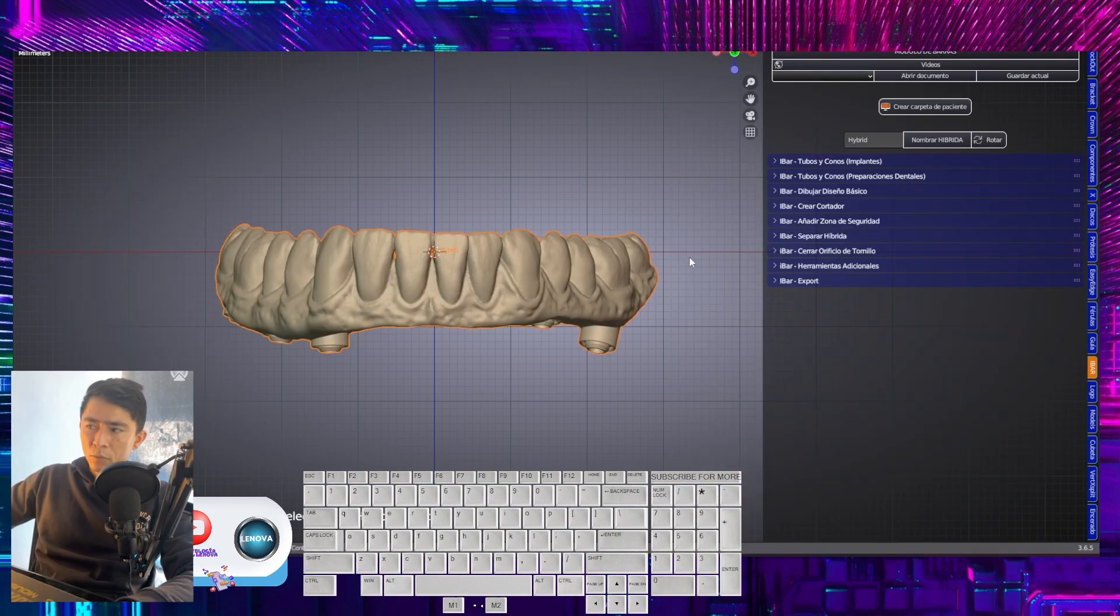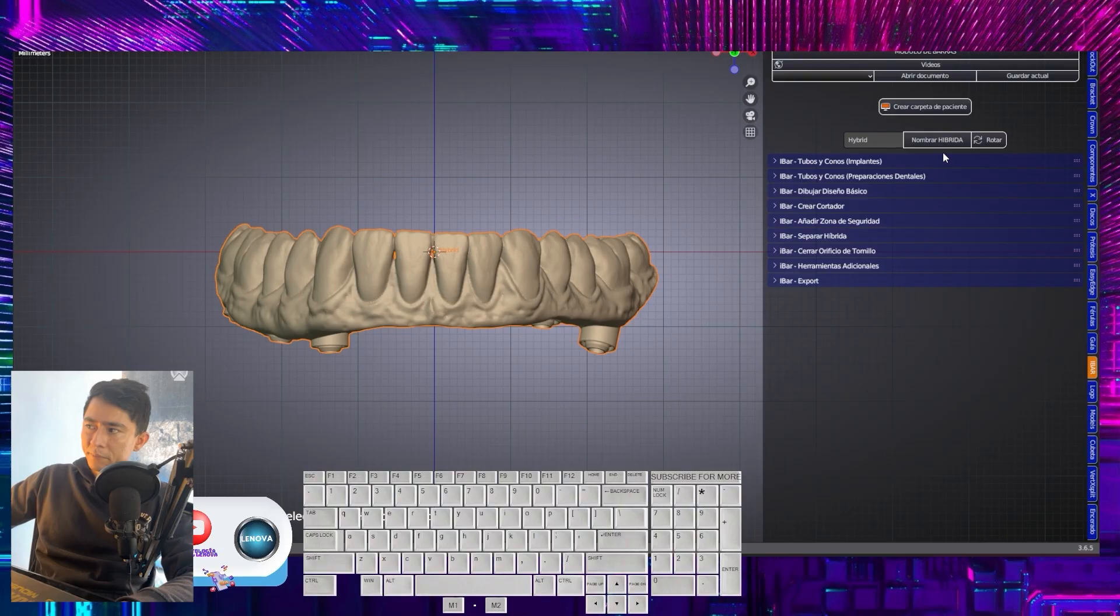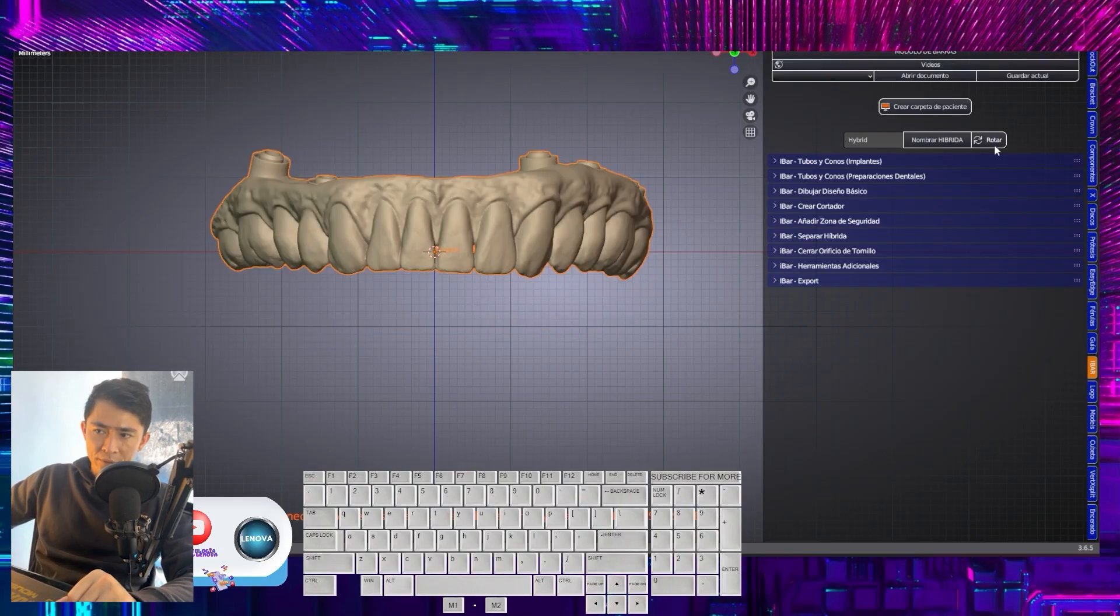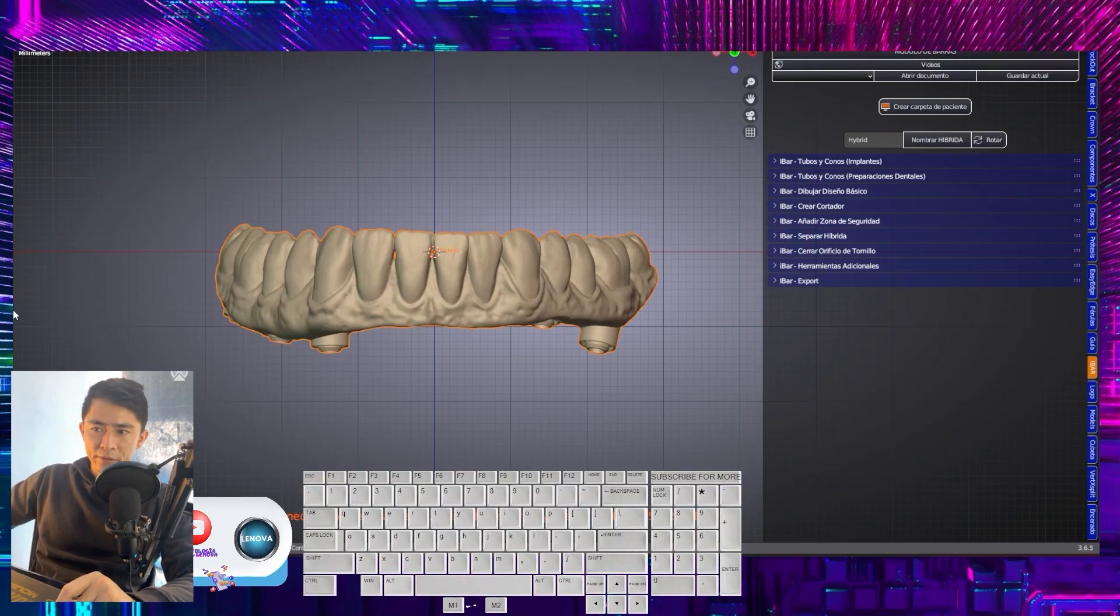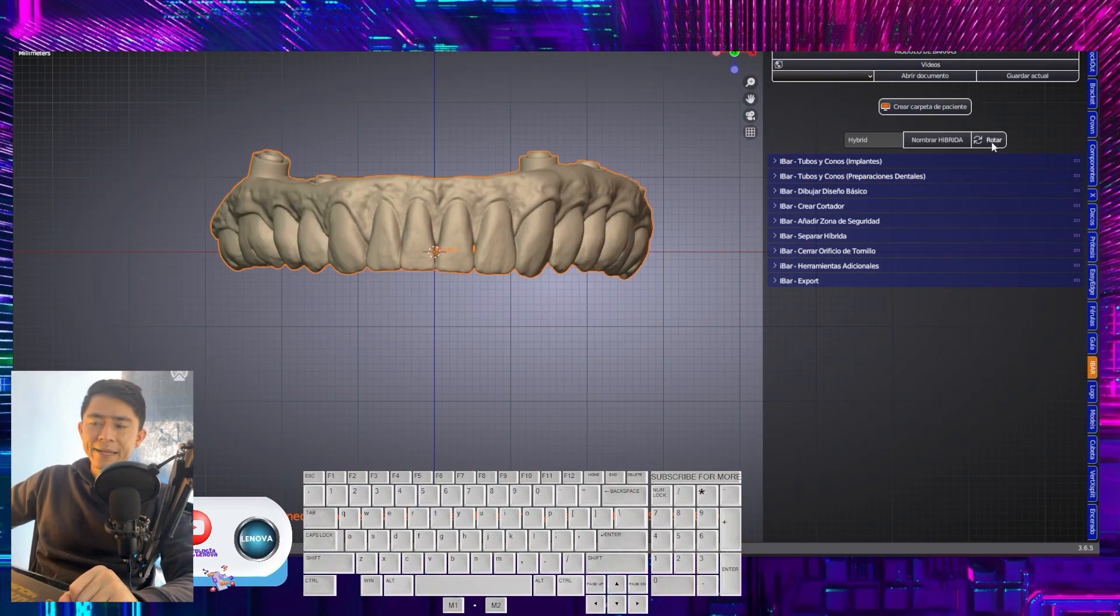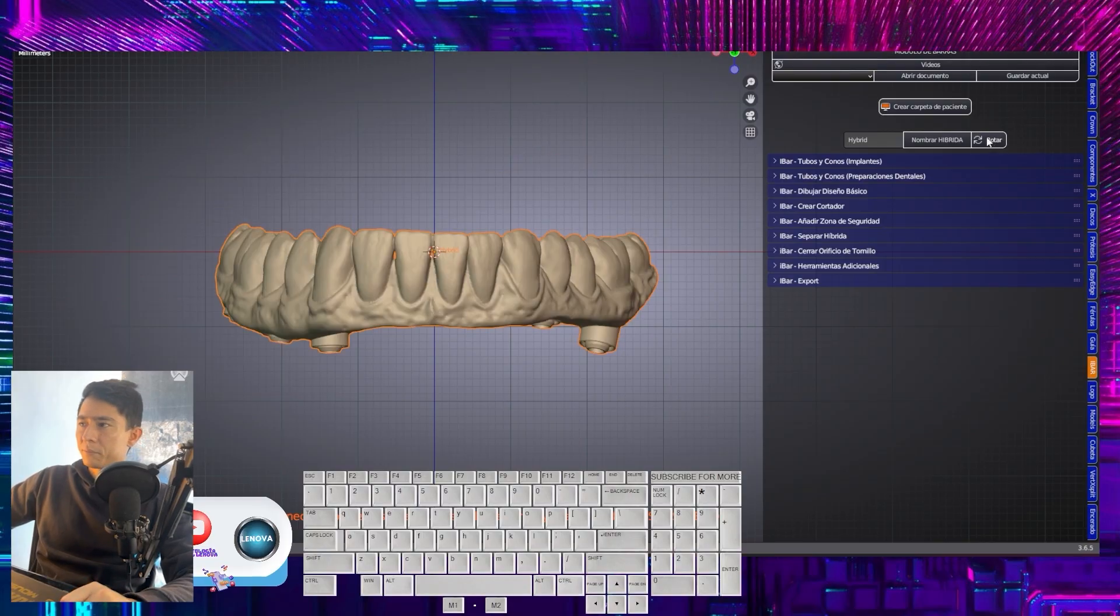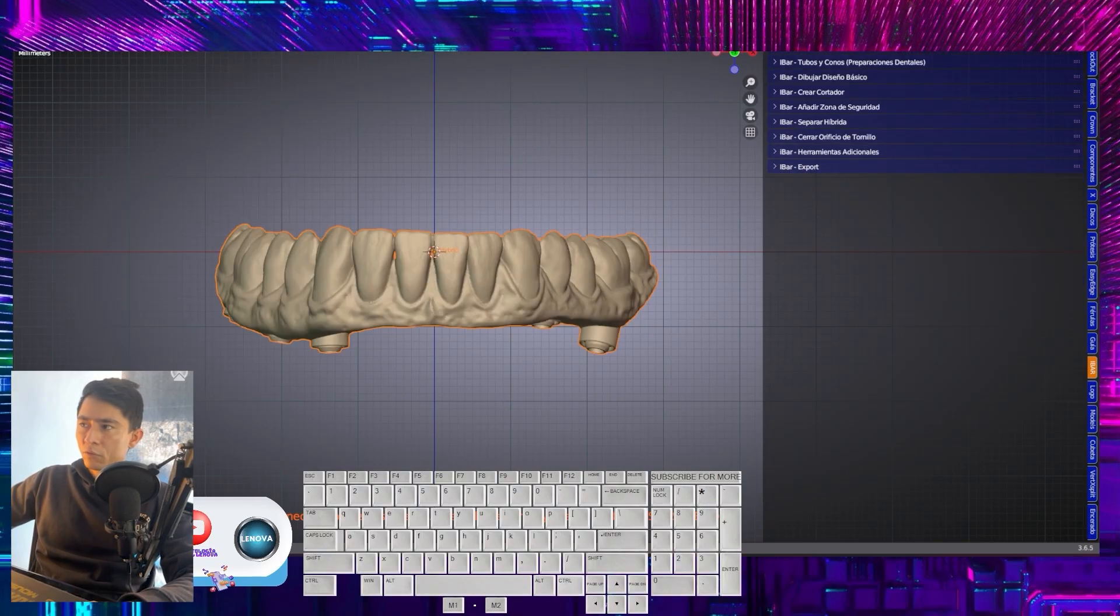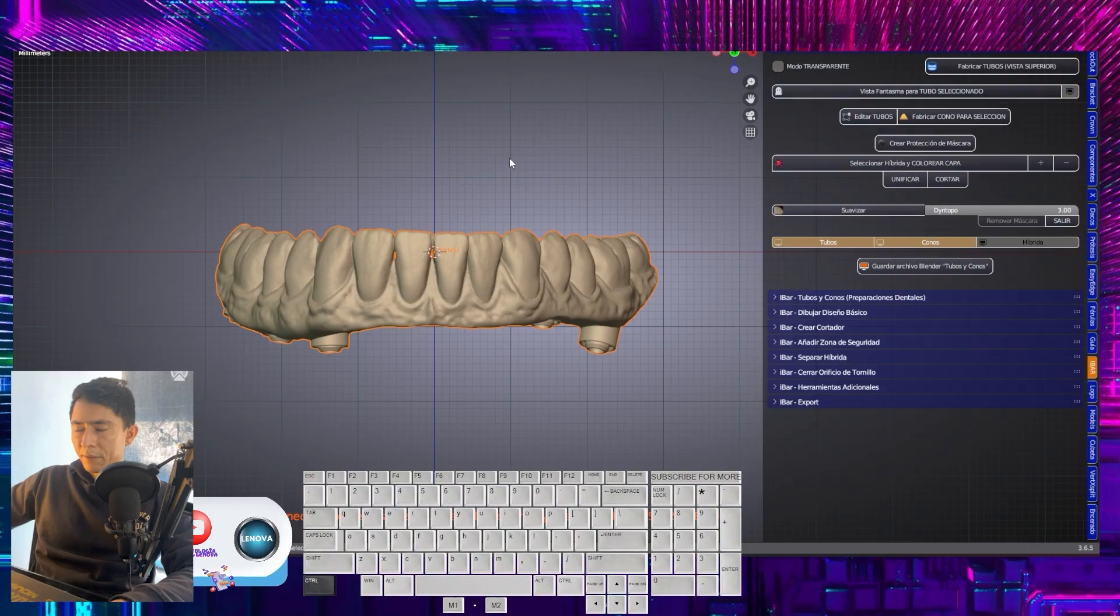Once it is named, we have to keep in mind the teeth go upwards, and we determine that position with this axis of rotation. We fold down, go to the next tab.